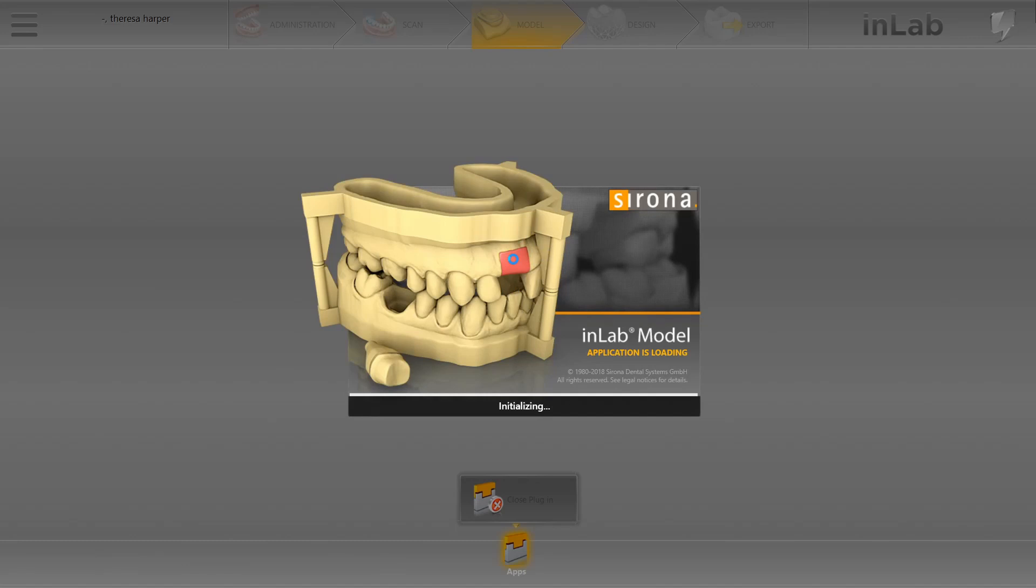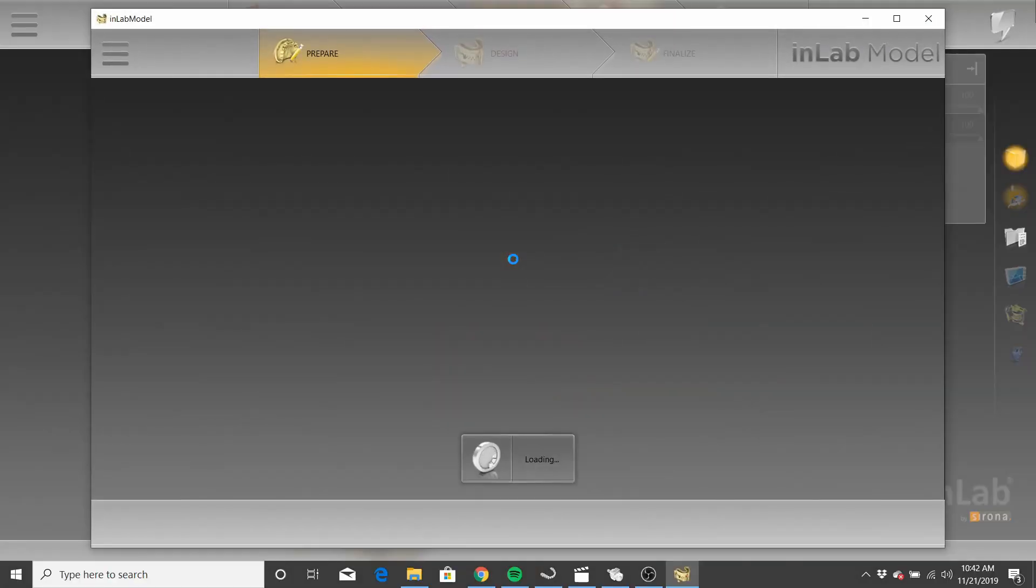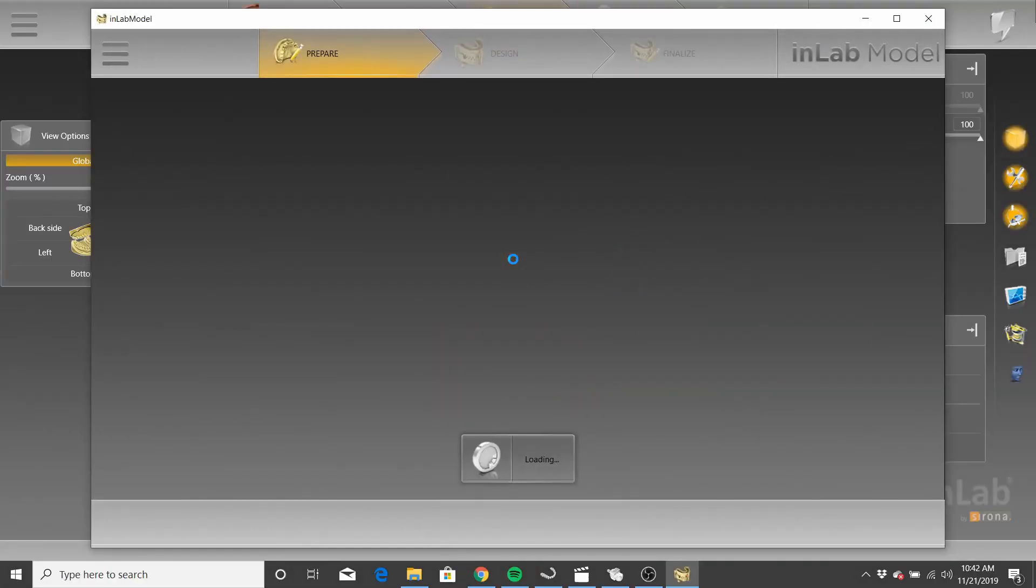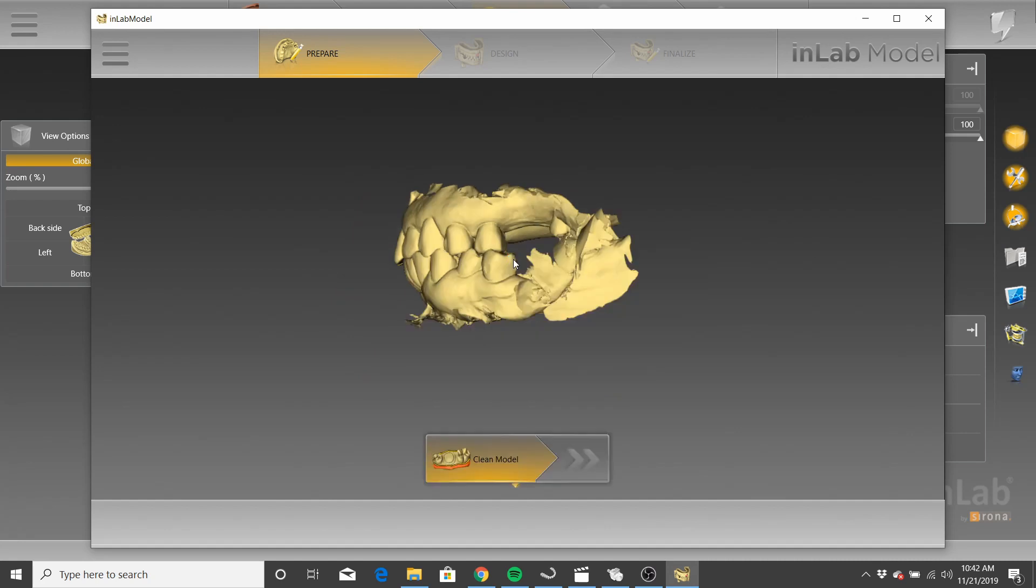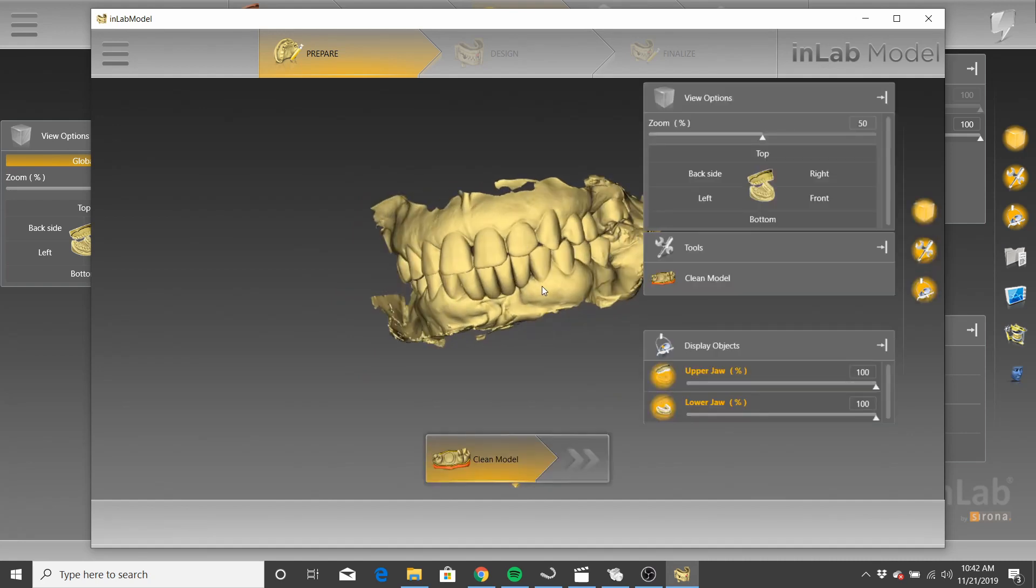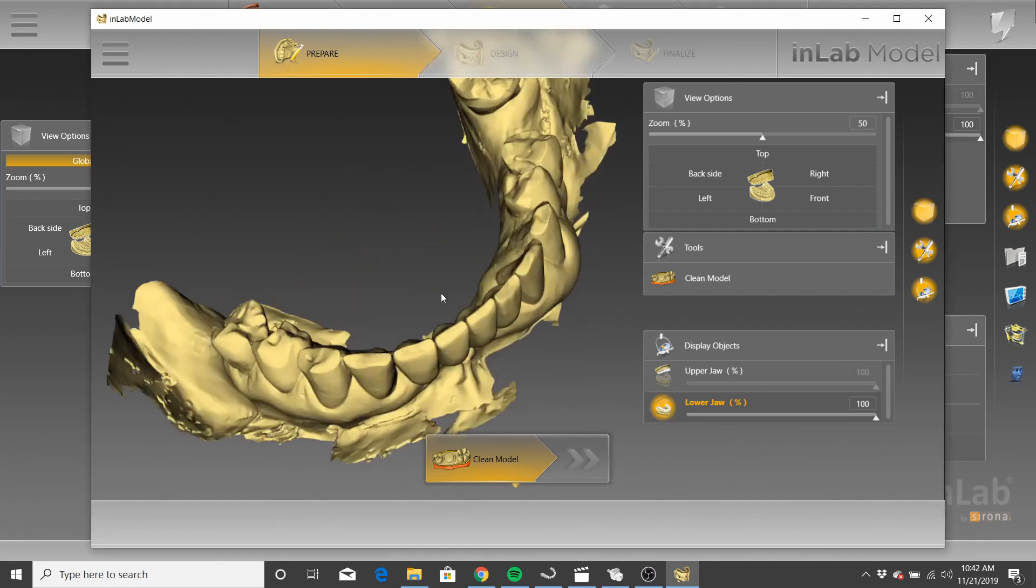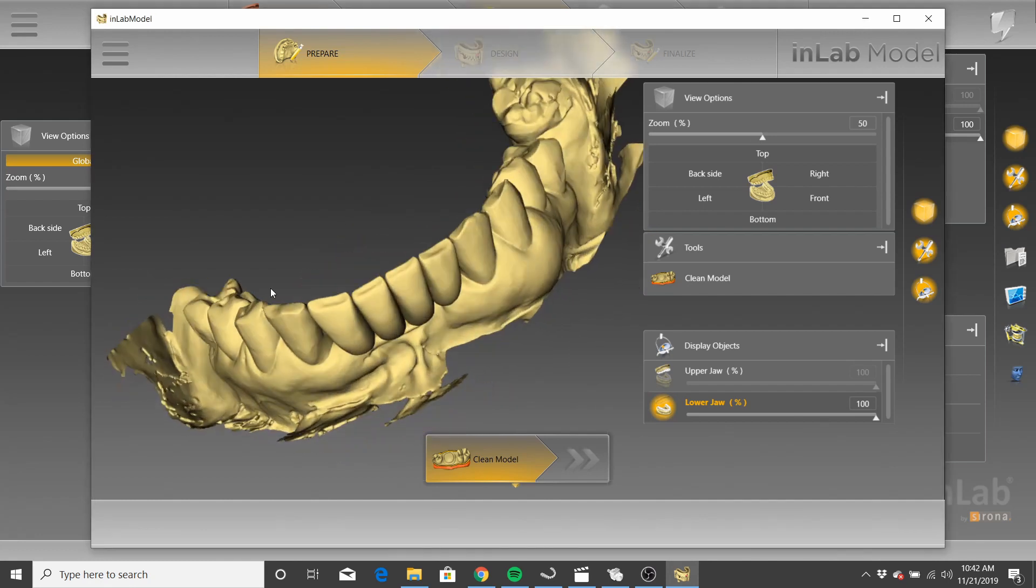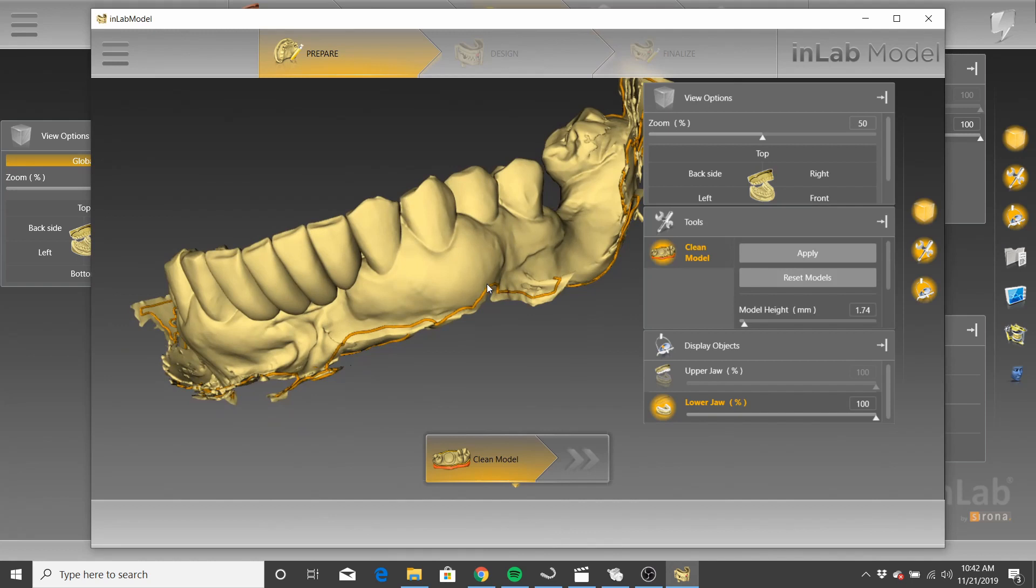I think that it will be really helpful. So while all this loads, just stay tuned or fast forward. But I will show you guys a cool little workaround. I've had to learn all this the hard way. But for a lot of trial and error, you get it figured out. Now, this workaround will require mesh mixer. It's just a free download. So you see your model, it looks all nice and sexy.